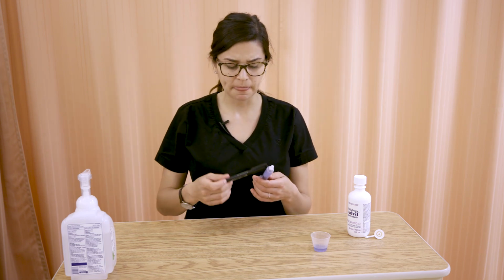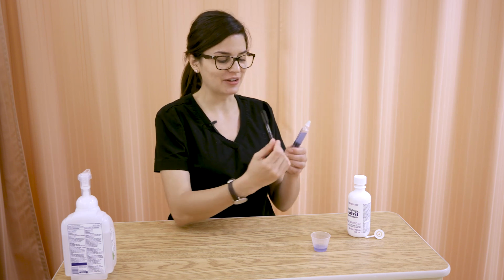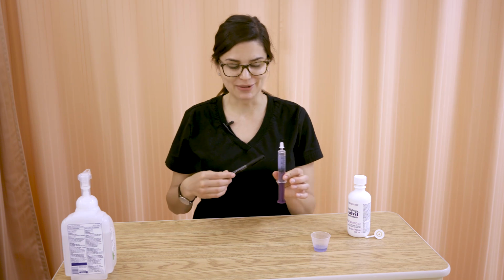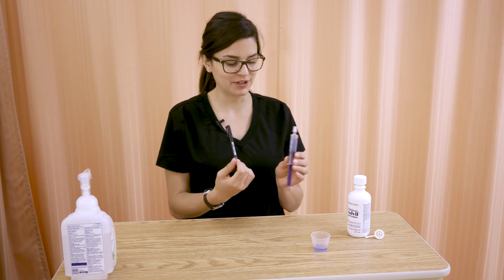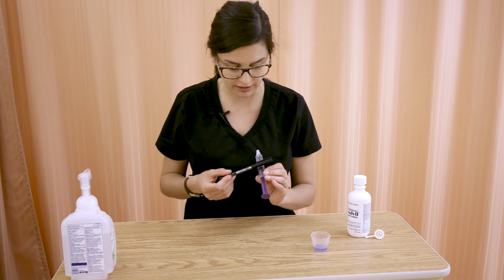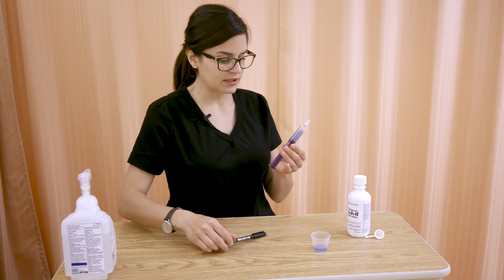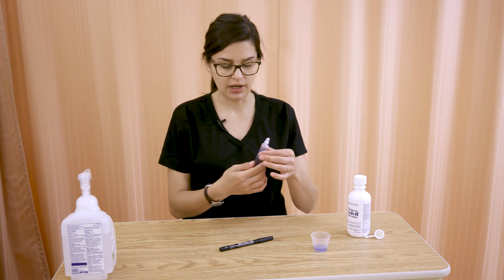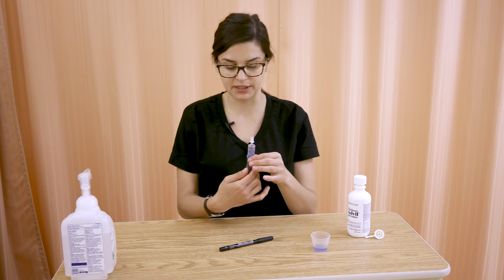Either is fine. What doesn't tend to work, and is really tempting and maybe seen in other areas, is gentle, consistent tapping. It's either going to take hours or sometimes even create more bubbles. So you actually want to give it a really hard whack. And I don't know if you could see, there was a bubble along the plunger there, but a really solid whack got rid of it. So we now don't have any bubbles along our plunger or within the barrel of our syringe, except obviously this big air space at the top.